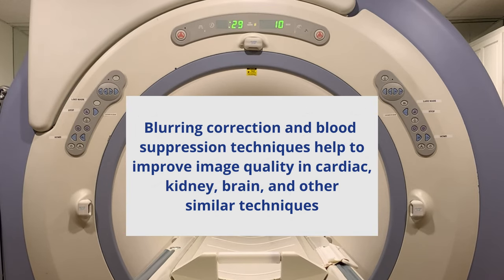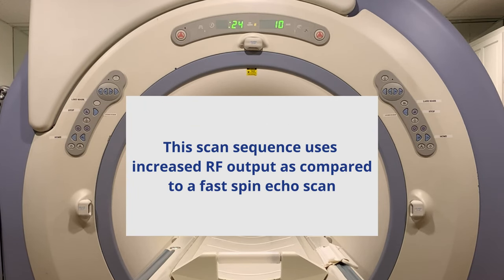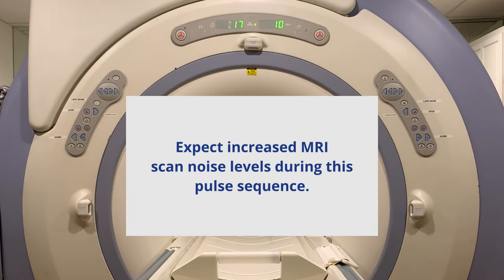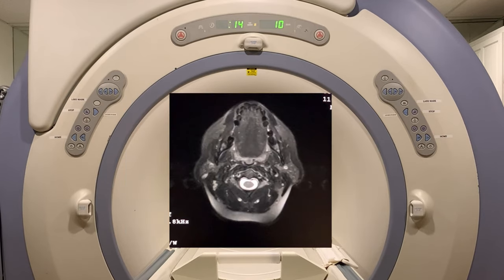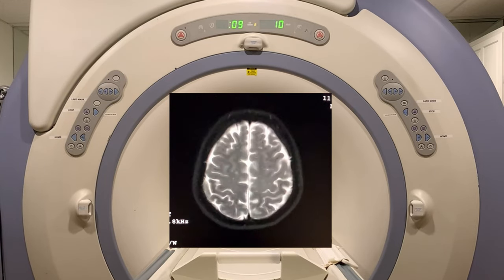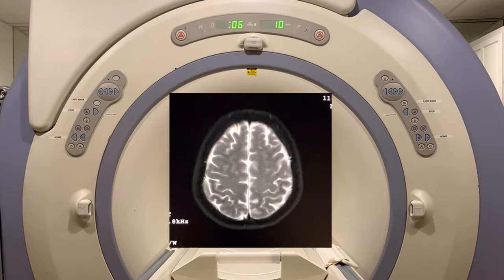The Axial T2 FSE XL pulse sequence is an accelerated Fast Spin Echo scan that applies optimized RF pulses to shorten echo spacing. This results in reduced edge blurring, enhanced tissue contrast, and faster scan times. FSE XL scan sequences are primarily used in cardiac, abdominal, and brain MRI scans.